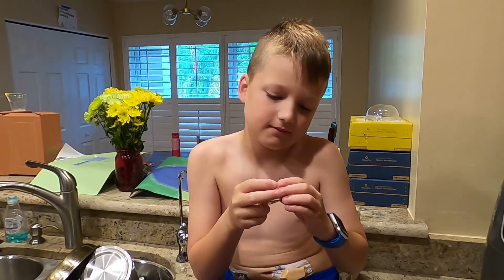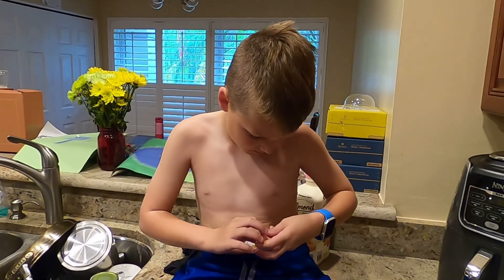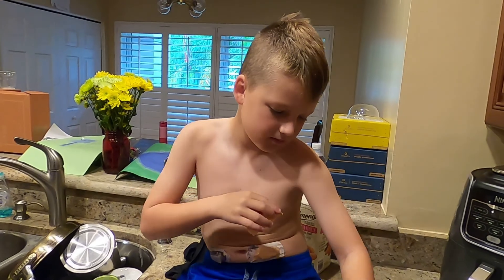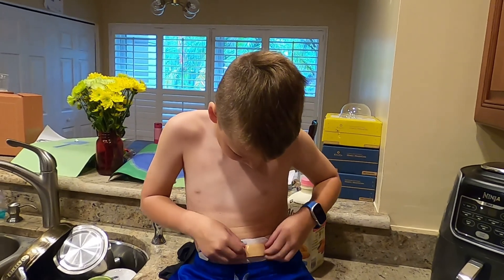No issue. This is the best way to do it. So Porter, you can do it. It's a new thing. Do you have any advice? Have you thought of anything you want to tell Porter? Is it nice to have the G6? Fewer finger sticks. We're excited about the G7 though, but we're super excited you're getting the G6.